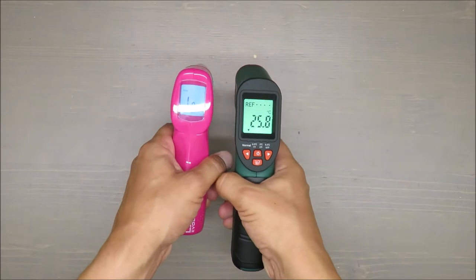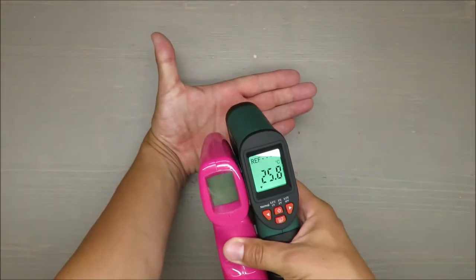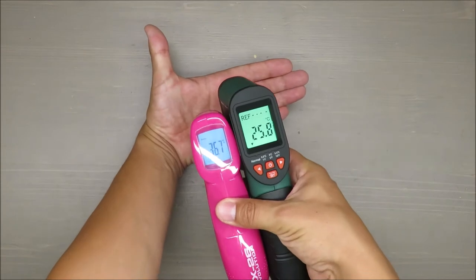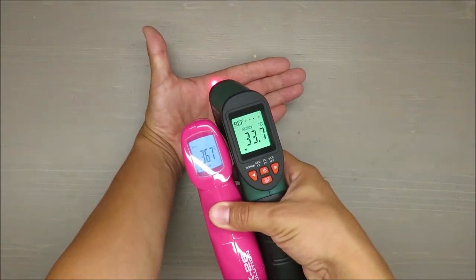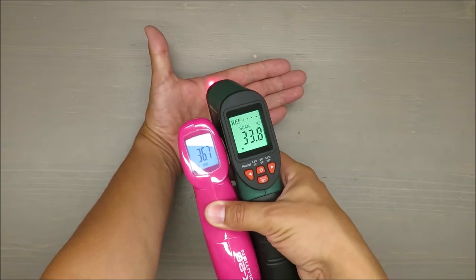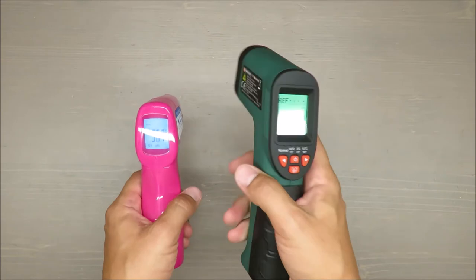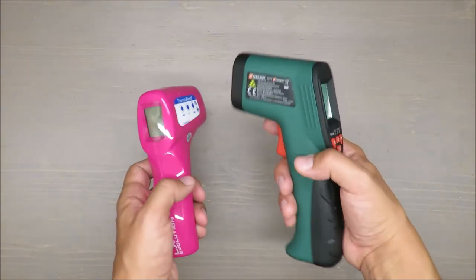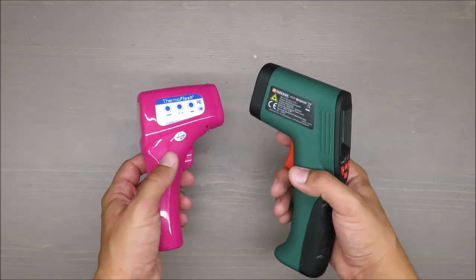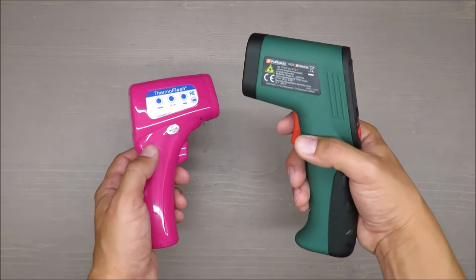What you need to bear in mind is that this infrared thermometer has a difference above zero degrees Celsius of plus minus three Celsius. This is the measuring range.